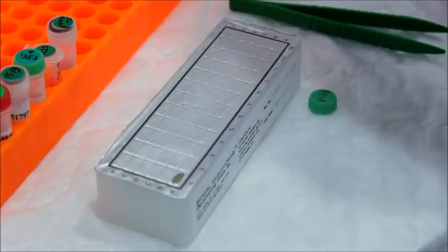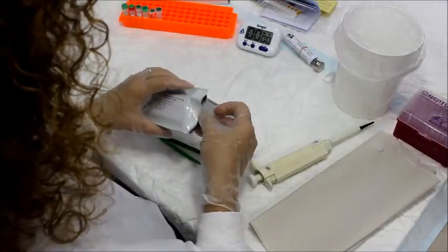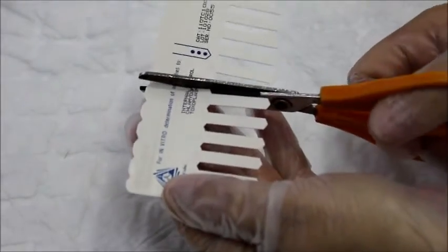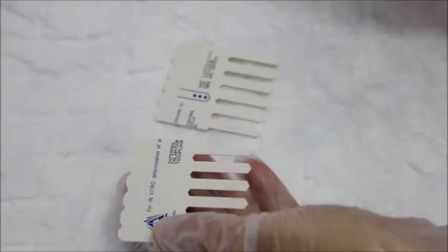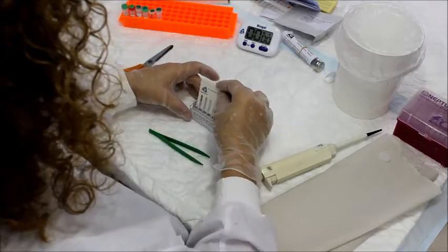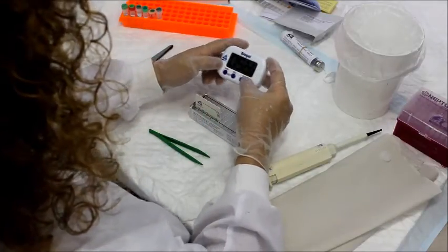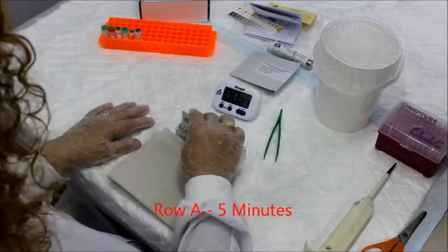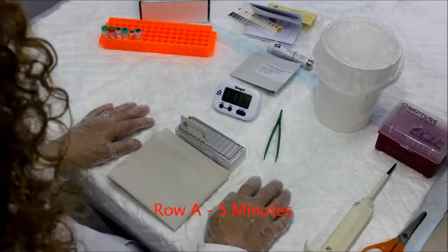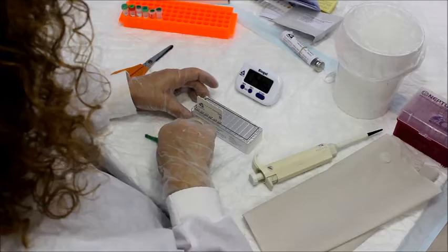Remove the comb from its protective envelope. For testing less than 12 samples, cut or break the comb by folding in allocated notches for the number of tests required. Insert the comb into the open well in row A, printed side facing you and incubate for five minutes. To improve mixing gently dip the comb up and down at the start of each incubation. Repeat this motion at least twice in all the remaining rows.